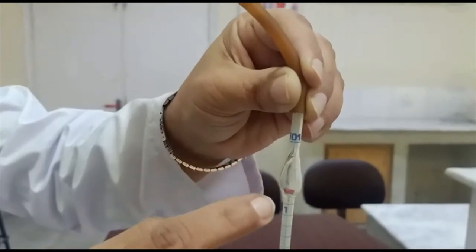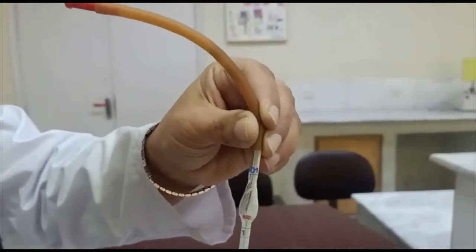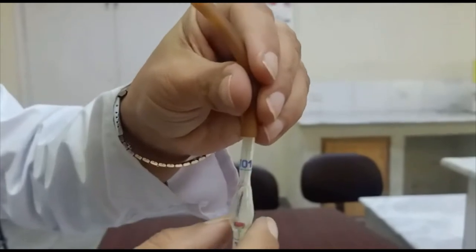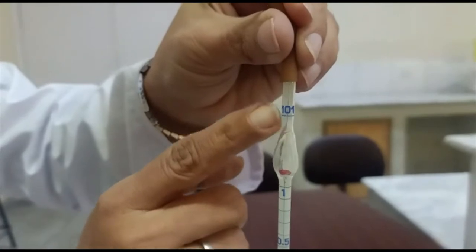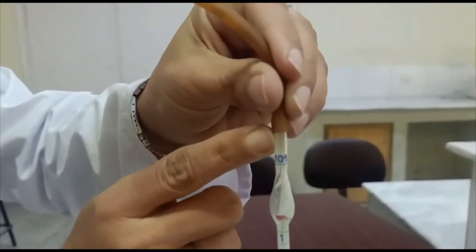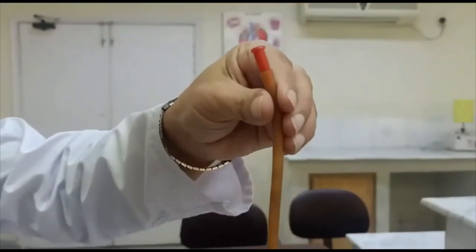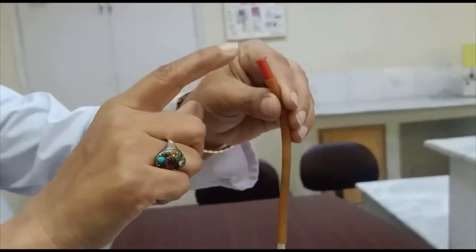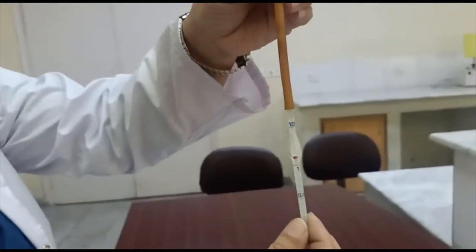The second function is that the bulb is used to mix the blood with the diluting substance. The third part is that this bulb narrows into a capillary tube, which is connected to a plastic tube ending in a red colored plastic mouthpiece. So this is all about the RBC pipette.